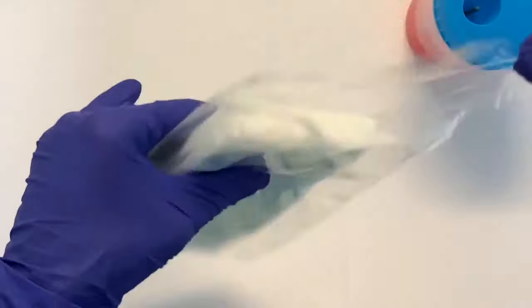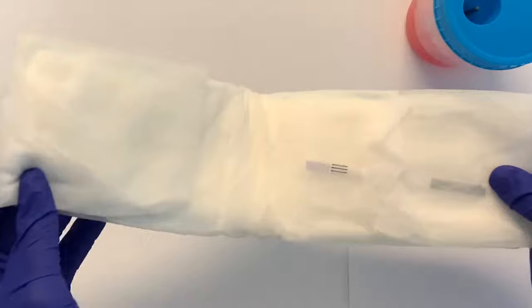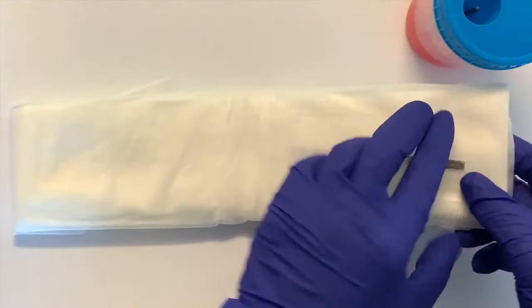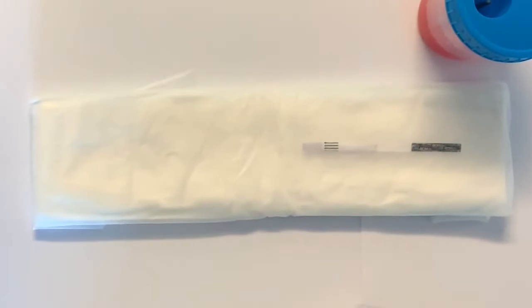When you receive the package and open the pad, you will see the test strip inside the pad. Please note that when you wear the pad, make sure the strip in the pad is located under the vaginal opening so the strip can absorb the liquid from the vagina.